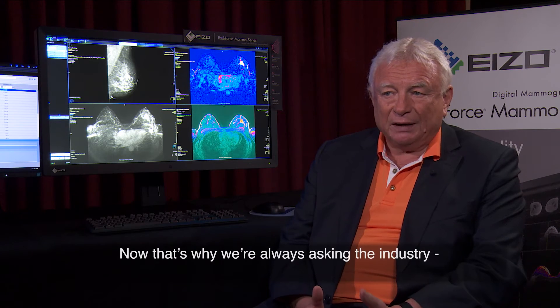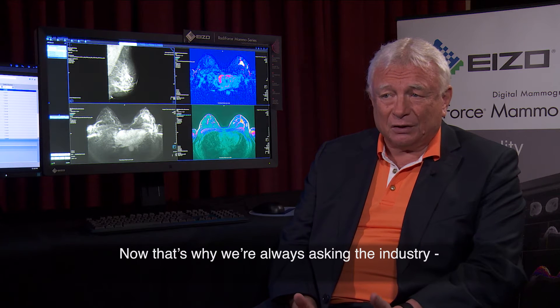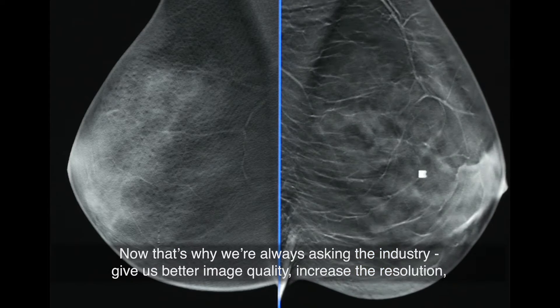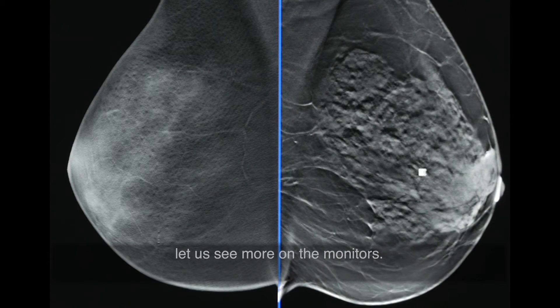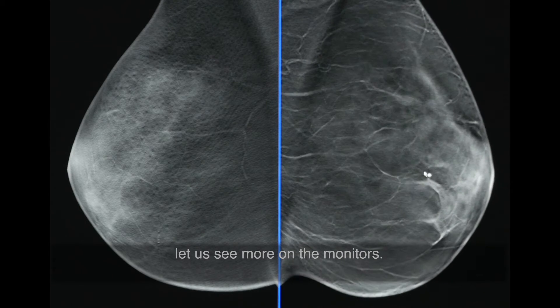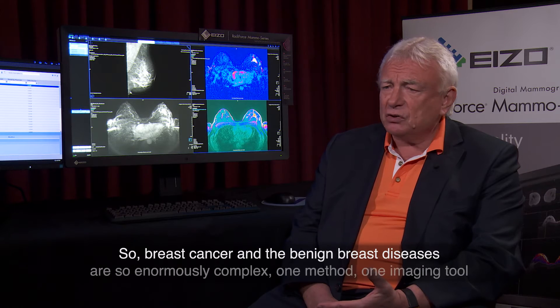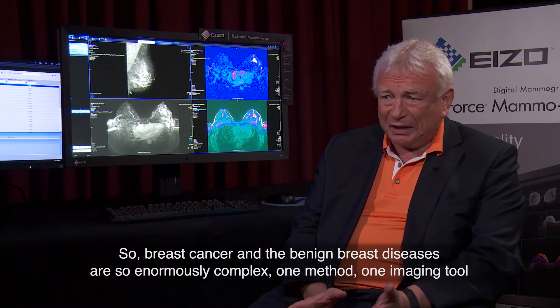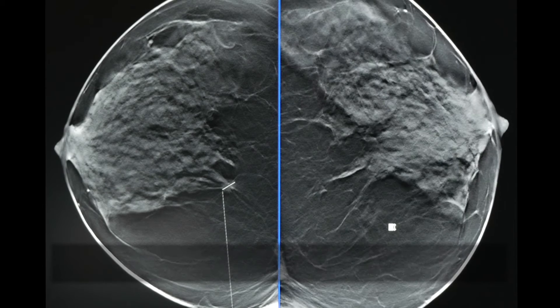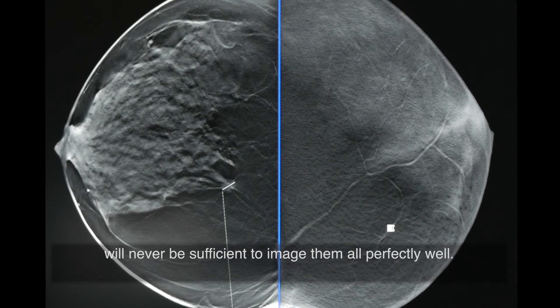Now that's why we are always asking the industry: give us better image quality, increase the resolution, let us see more on the monitors. Breast cancer and the benign breast diseases are so enormously complex. One method, one imaging tool will never be sufficient to image them all perfectly well.